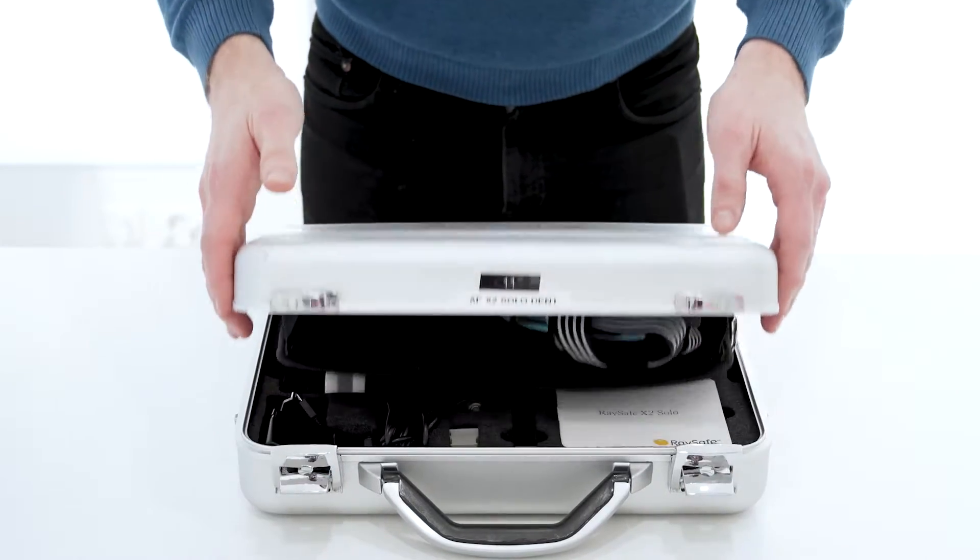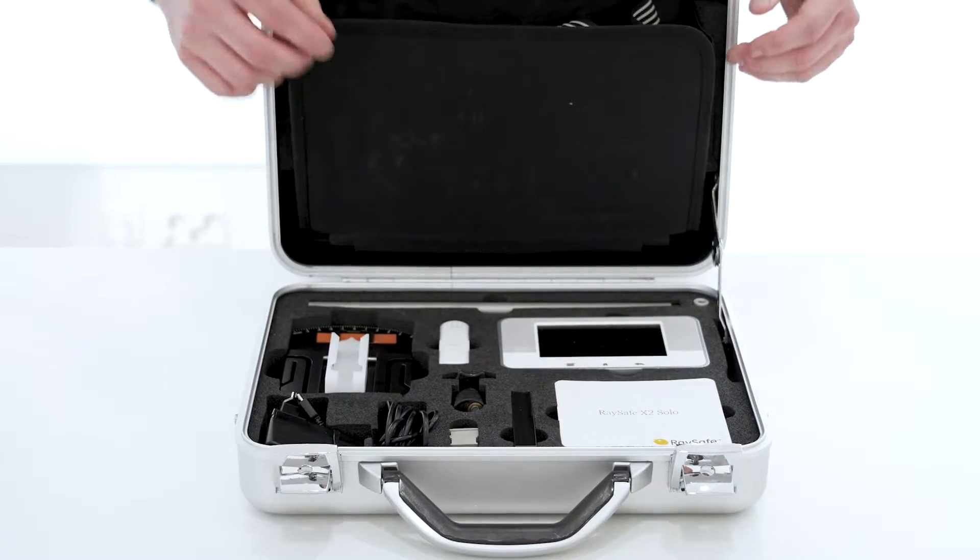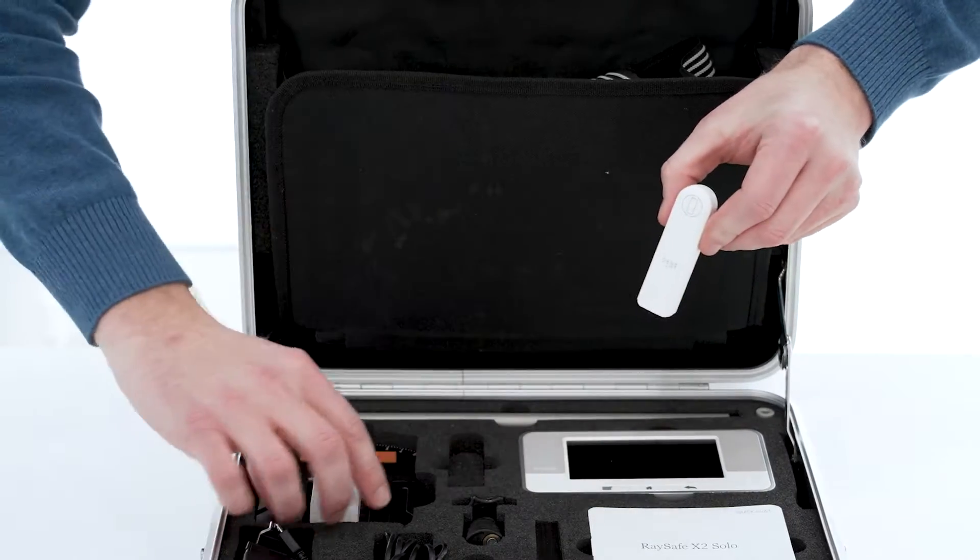In this video, I will show you how to position a RaySafe X2 dent or RF sensor on a dental panoramic machine.